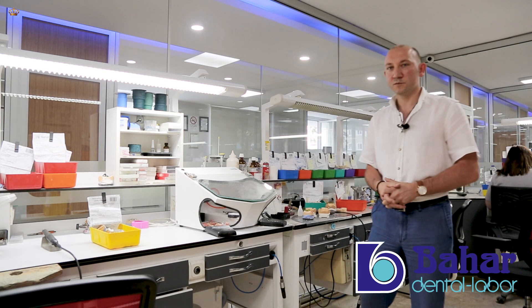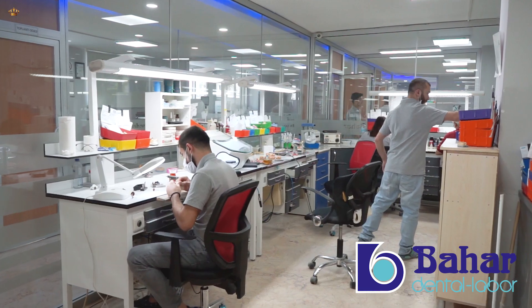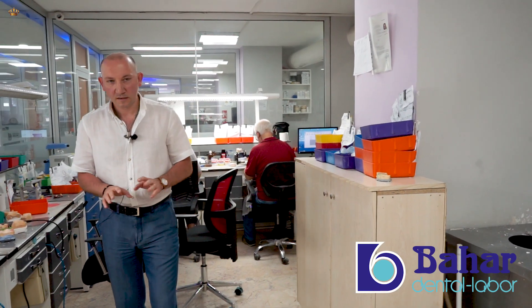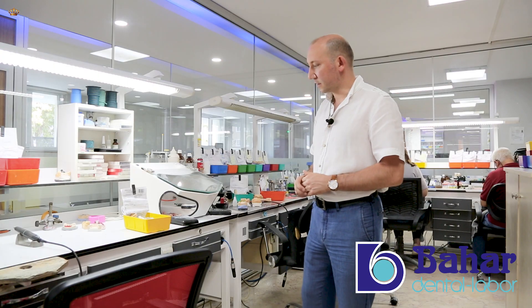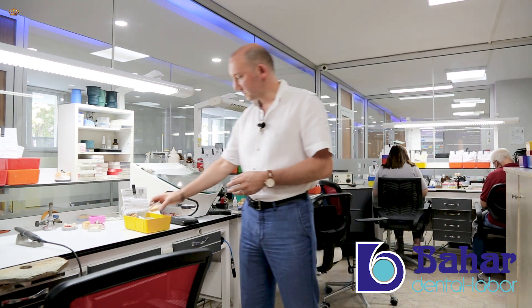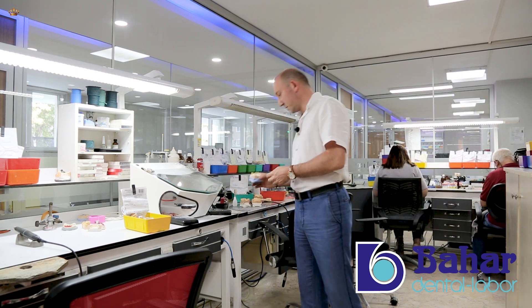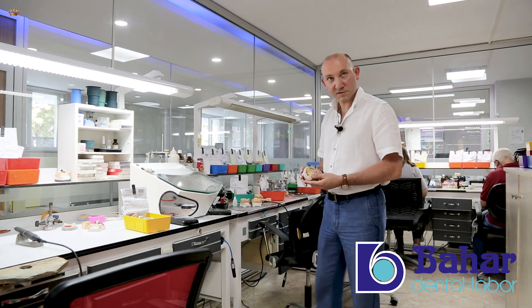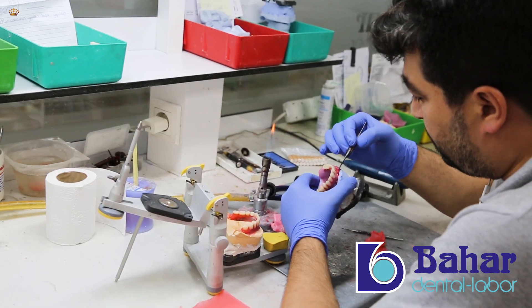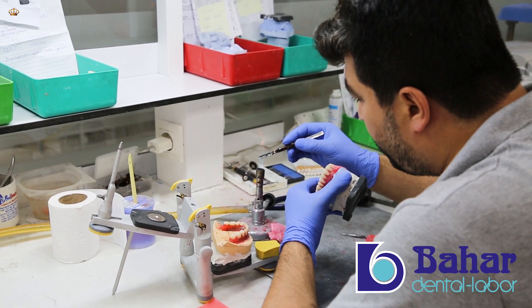In the department of dentures, absolutely all the work is done on site, as well as all other operations in our laboratory. In the department of dentures, skeletal prosthesis, hybrid prosthesis, and acrylic full denture are created.